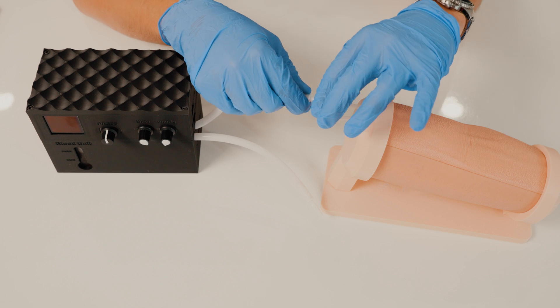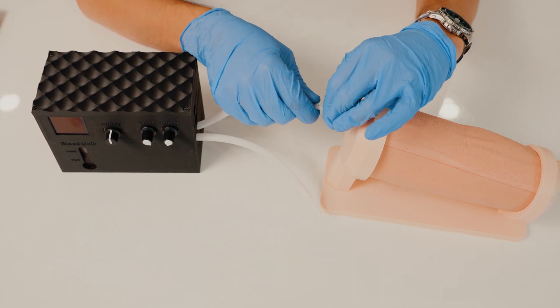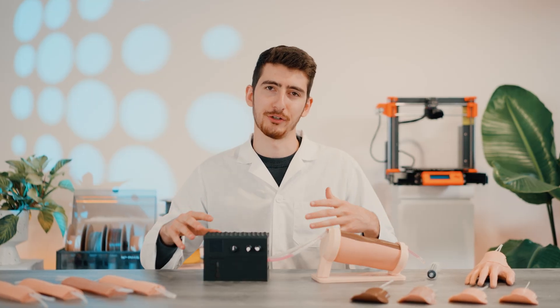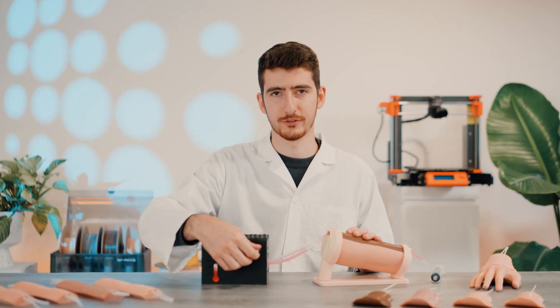Once you reach the desired amount of blood in your unit, plug it back in to the simulator. After you refill the unit, you can turn it back on and set the pressure and pulse to your desired amounts.